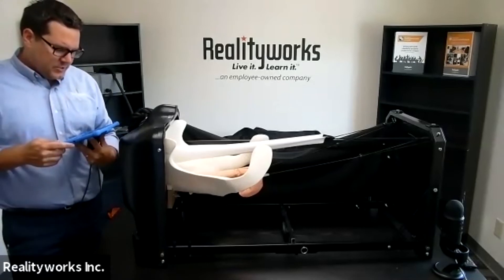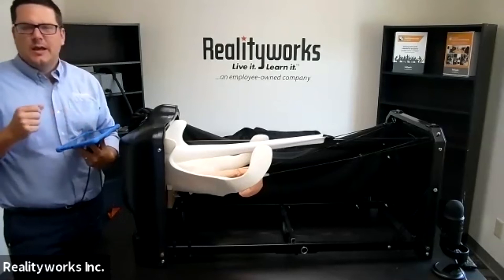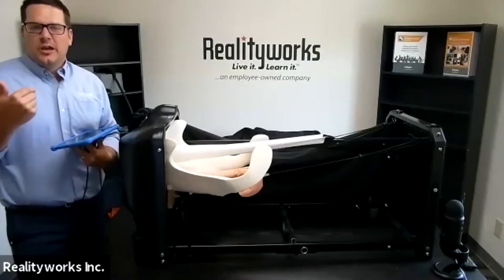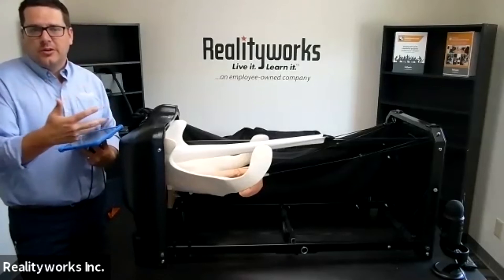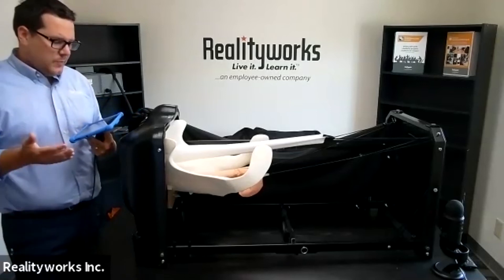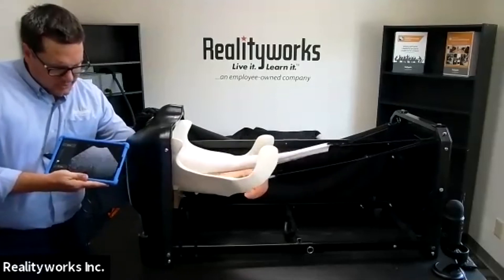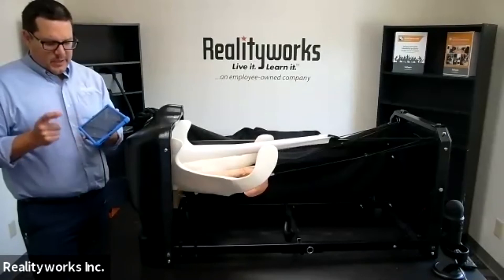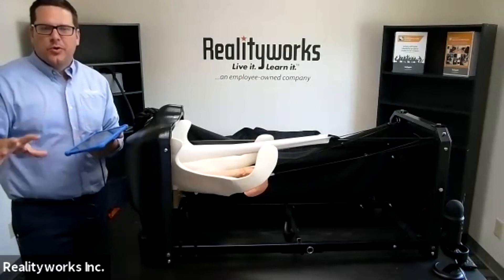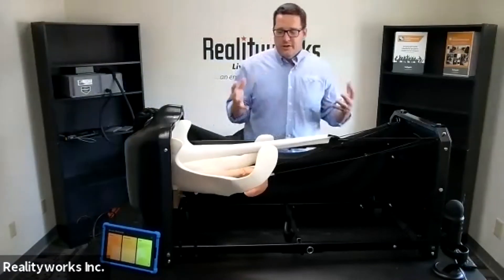I can go to patient history, which gives different scenarios asking you to check on an animal. It goes in and asks for a pregnancy check — go in and see what you see — then talks through what you're seeing in that scenario. It gives background on animals that were just bred or have been bred for a certain number of days, and you want to check for twins or hormonal needs. There's also a test area with over 20 scenarios asking what you can see with this fetus. You go in, look at the visual, figure out what's going on, submit your answer, and it tells you if you were right or wrong. It helps students trial and error and see what they're doing.